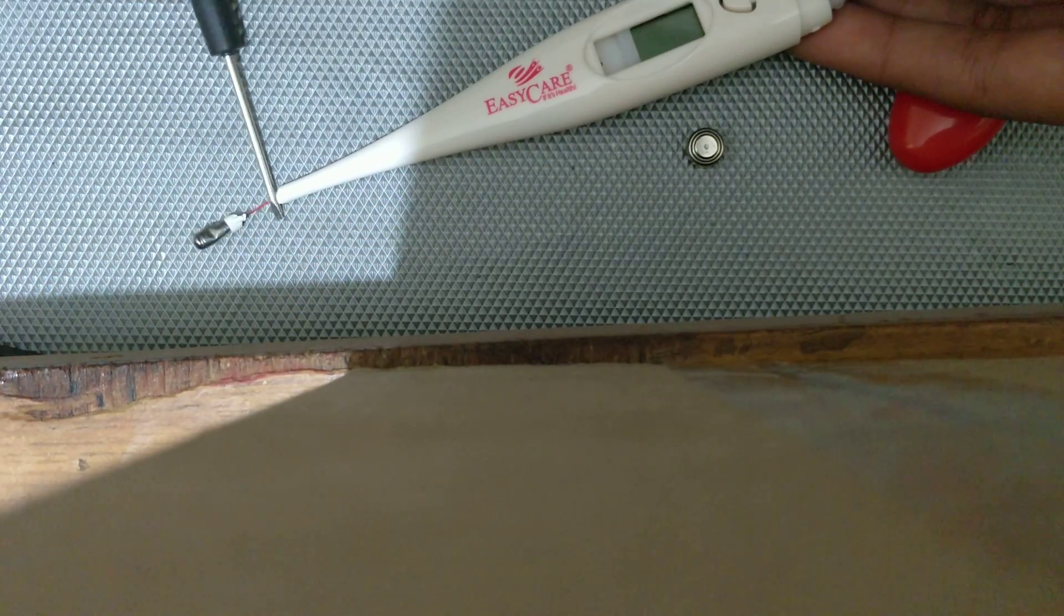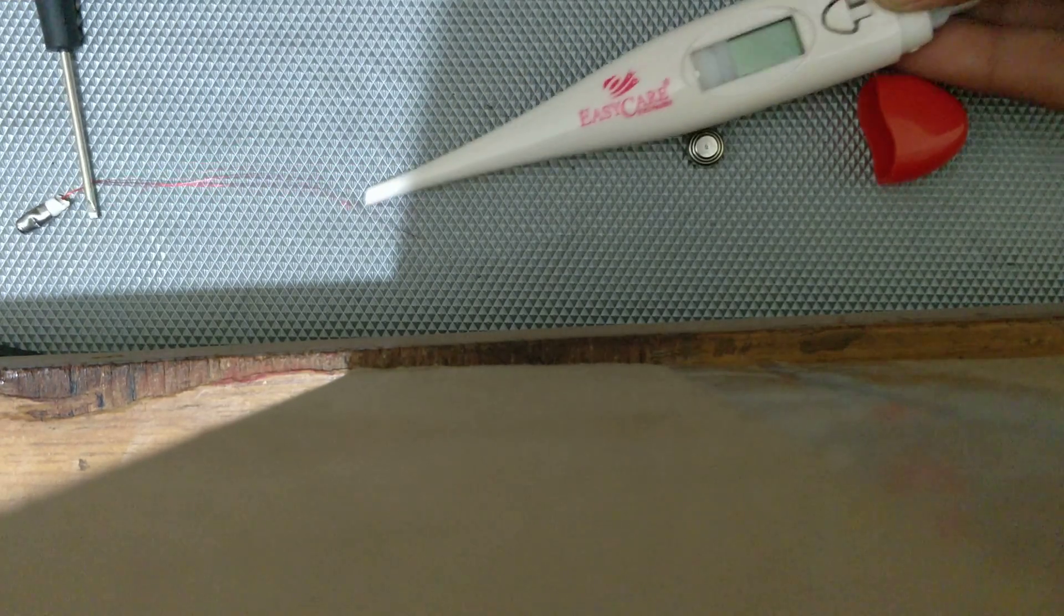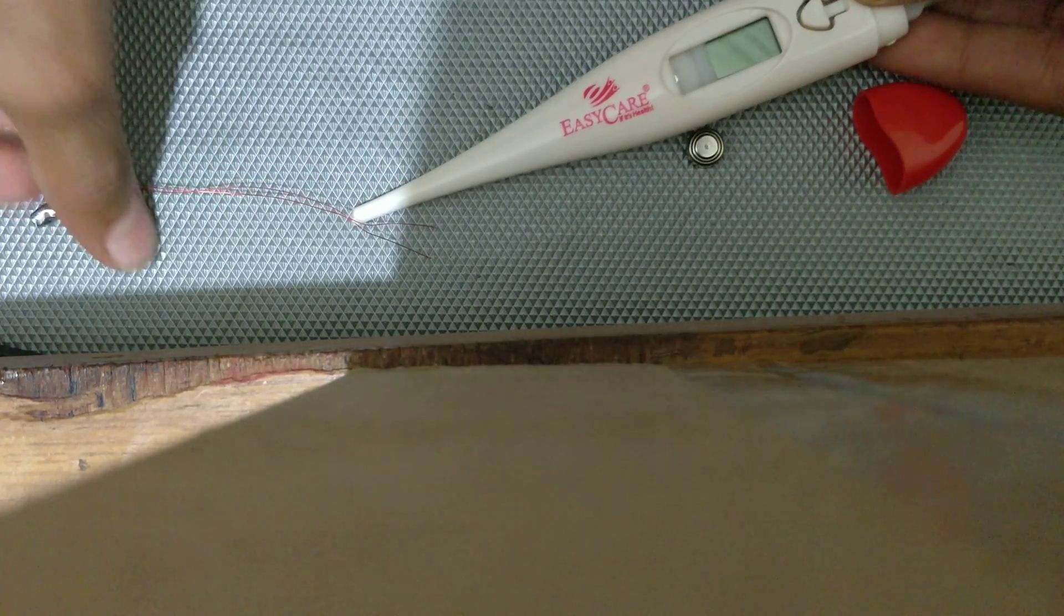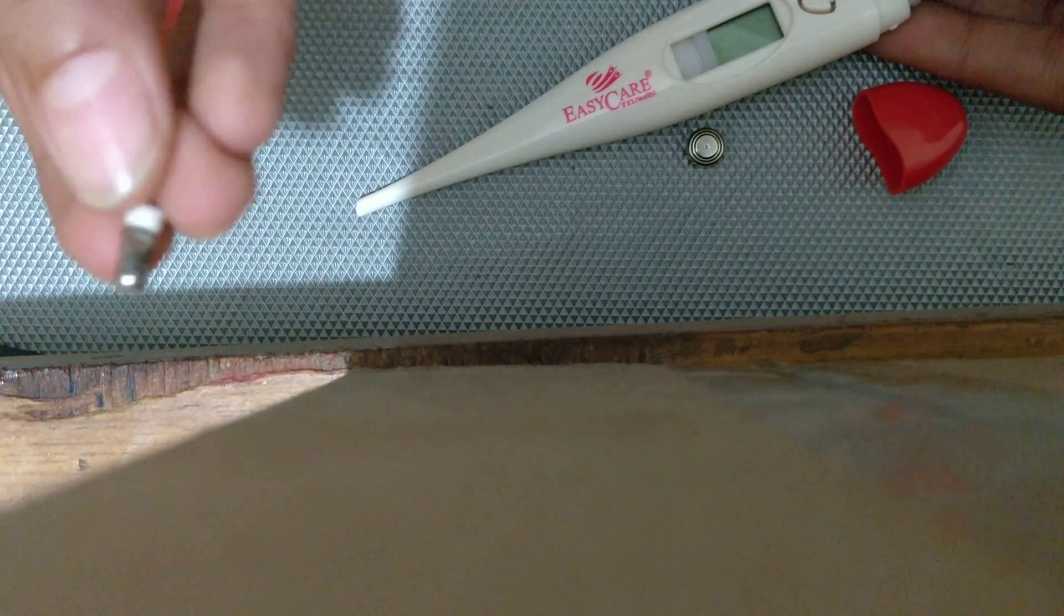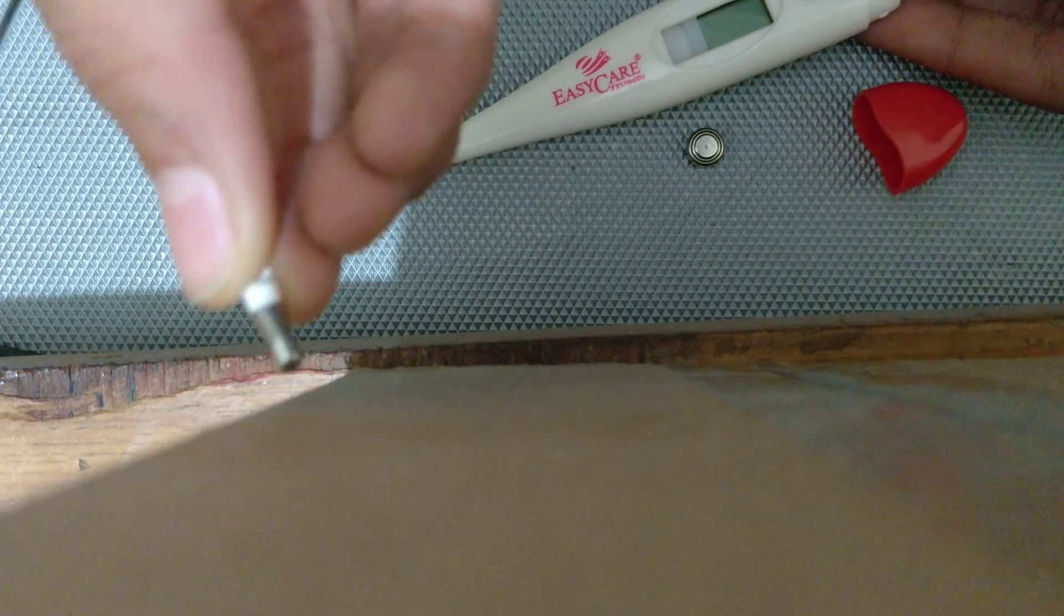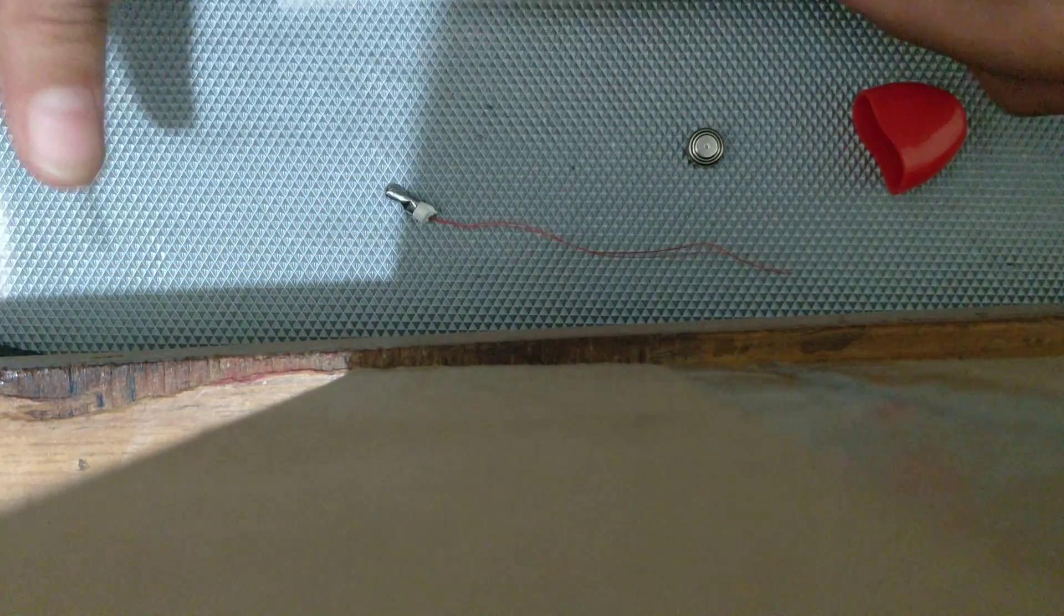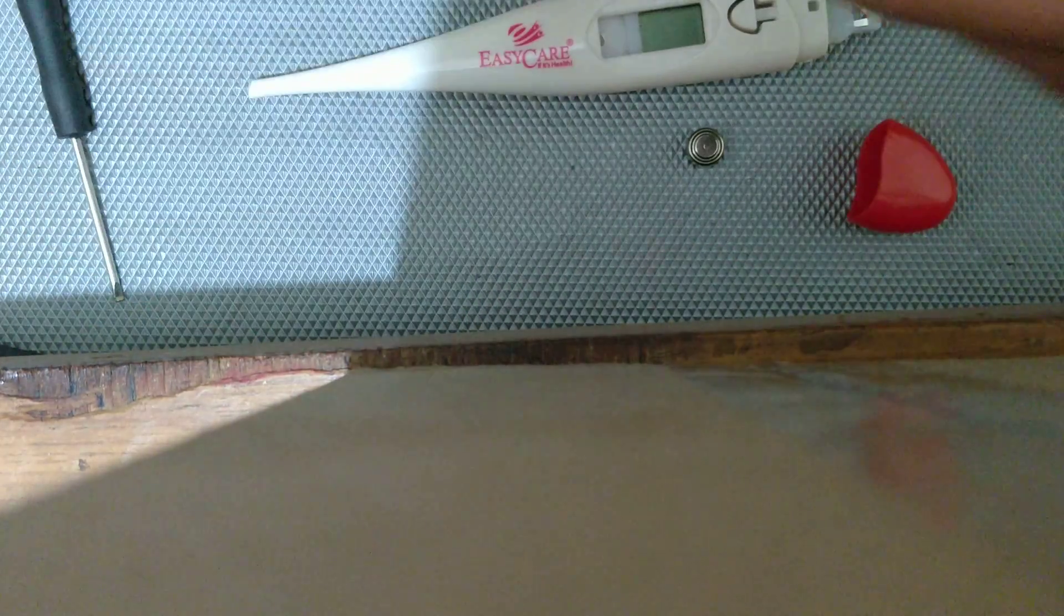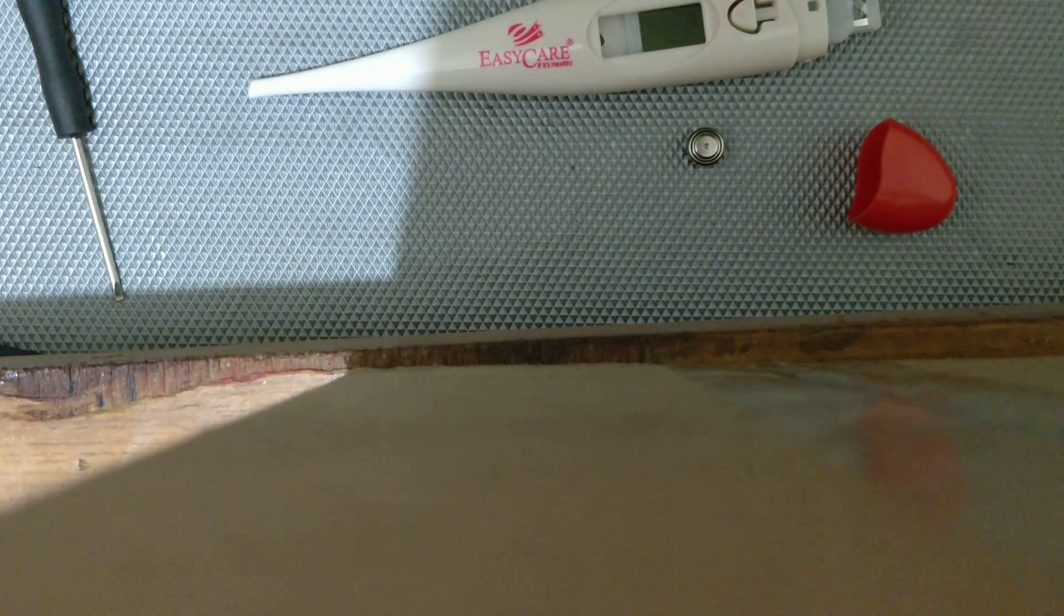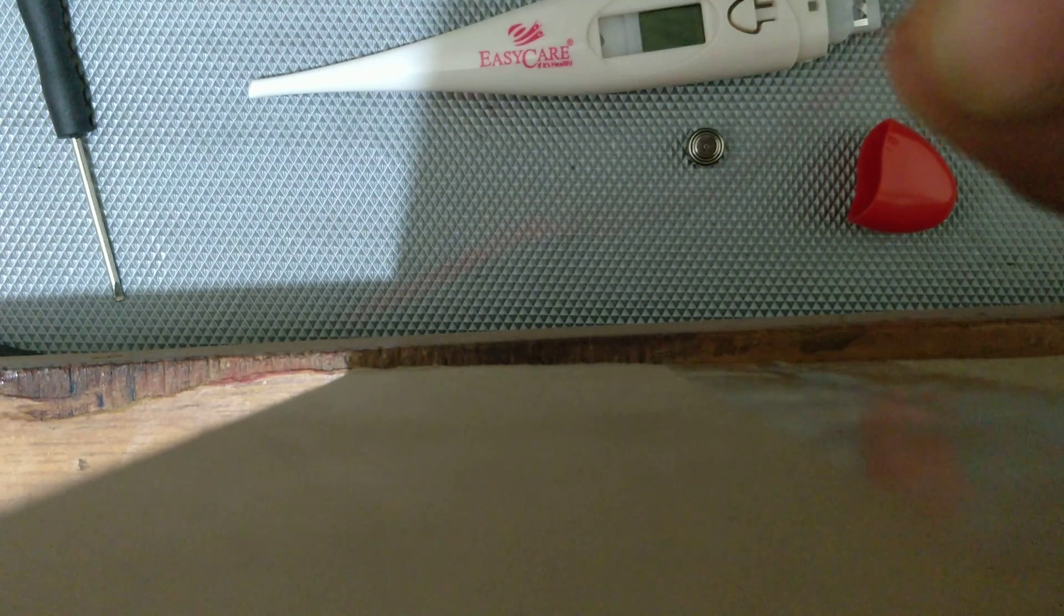I will just remove this and salvage this. I think there is an analog temperature reading sensor over here with the ground wires. If you carefully observe, there are two wires over here.